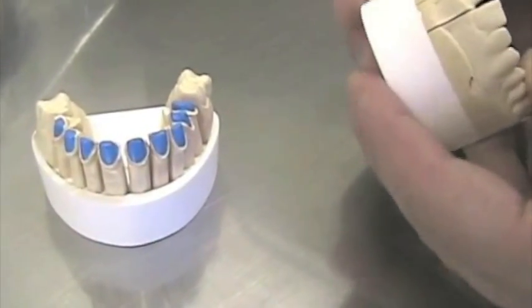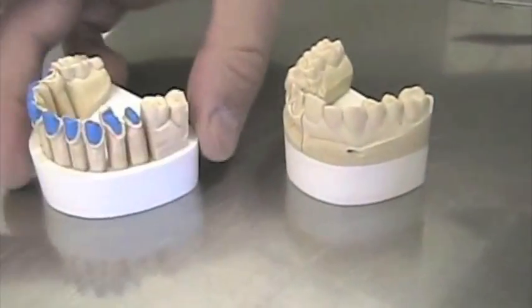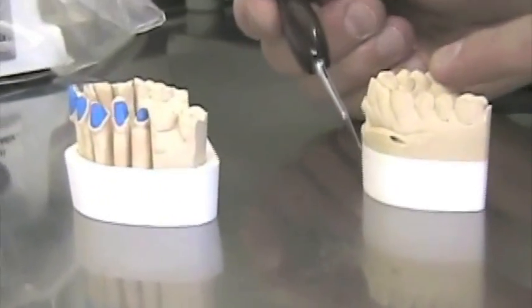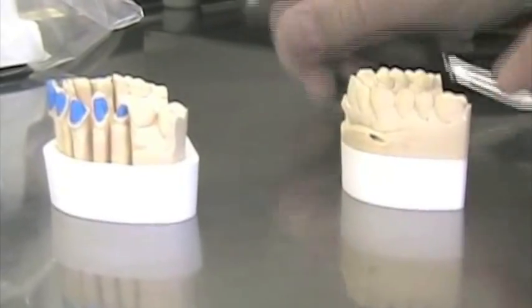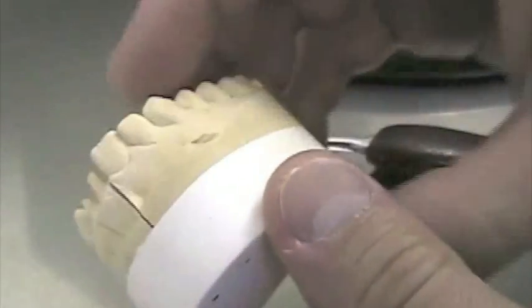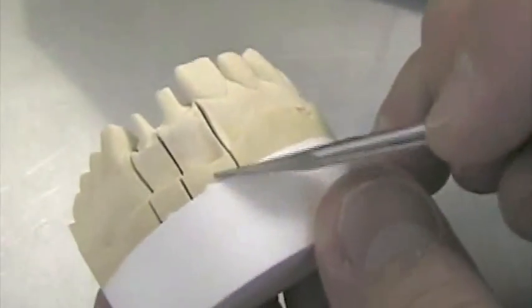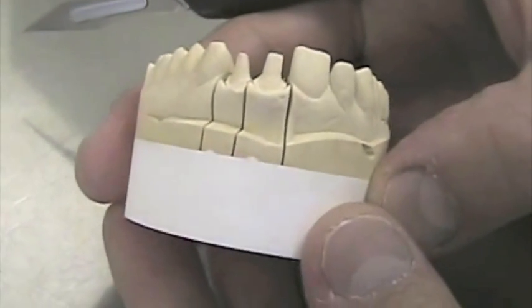I have two models. They are prepared. The bases are made. And you see from the profile here, the one on your right, I had cut the silicone properly and I had enough brownstone here. So I could keep the base on the same profile. The advantage is we are certain to have every part in place. We can visualize and you see the brown and the whitestone — they fit. There is no space, which is much easier and much more practical to work with.